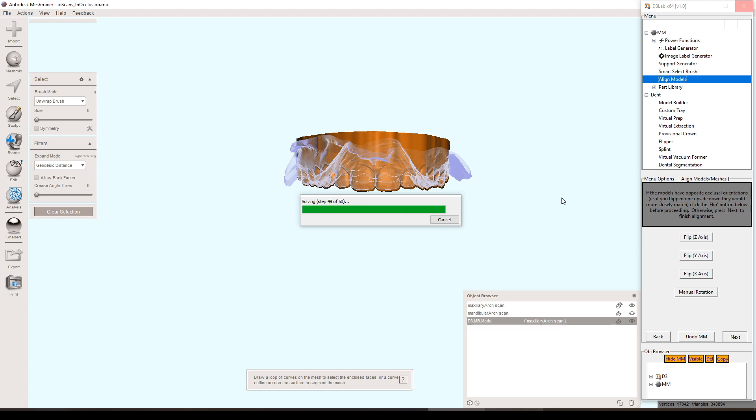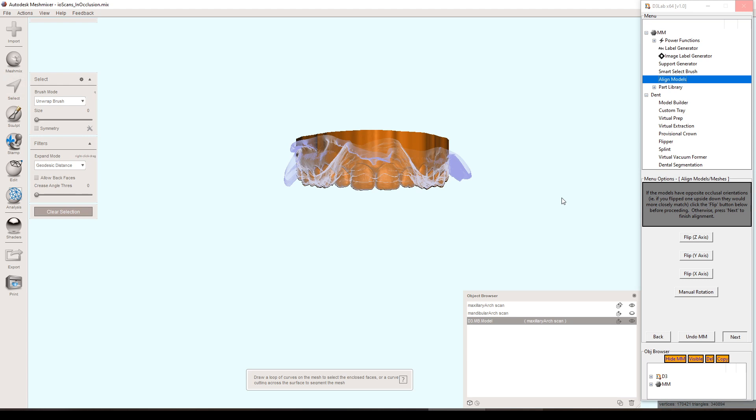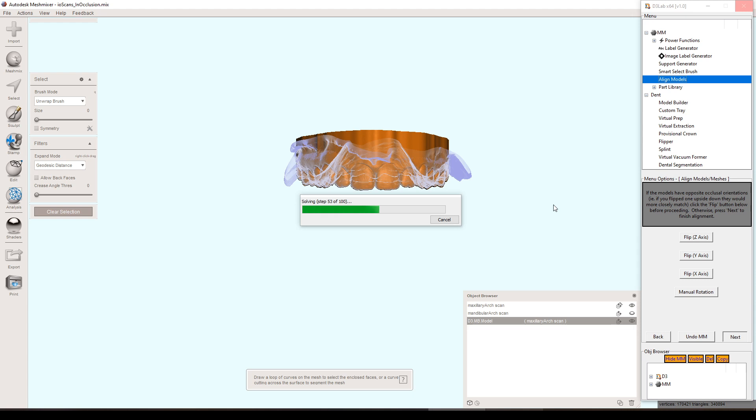So the first thing it does is a round of 50 iterations. And that just kind of gets it in my mind as close as possible, even though it's probably fine right now. Then it does another hundred iterations, just to absolutely make sure it's in the right place. Even though again, I feel like it's already in the right place, but just to make sure. And you could argue that this is redundant, not necessary, but at the same time, just for a tiny bit more of a weight to ensure the accuracy. I don't know. I feel like it's a good call. So that's why it's in there. And that's what it's doing right now. It's doing that second round of iterations, a hundred.